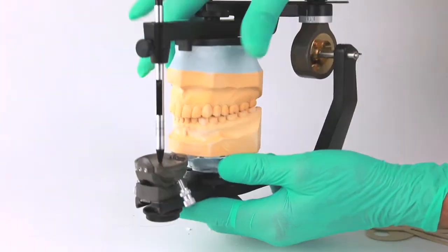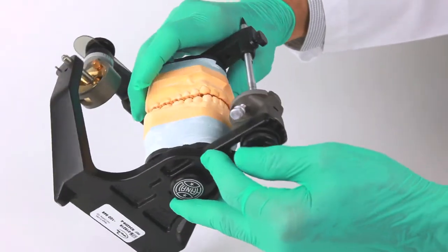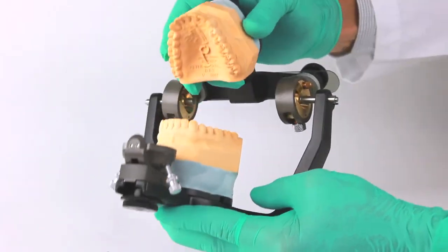This is a good time to confirm that you have appropriate articulation. Now you are ready to add the second layer of mounting stone to obtain adequate strength and a neat finish to the cast mounting.